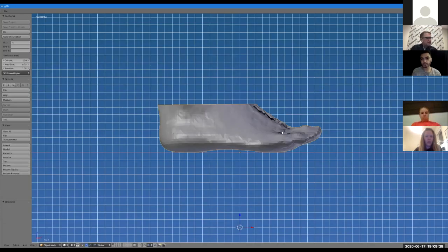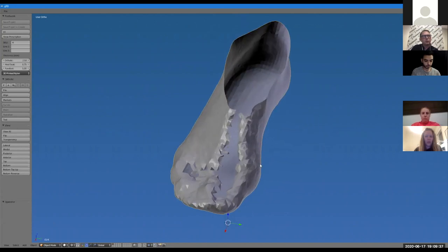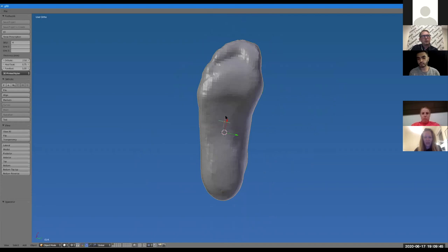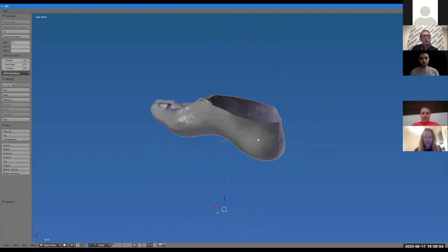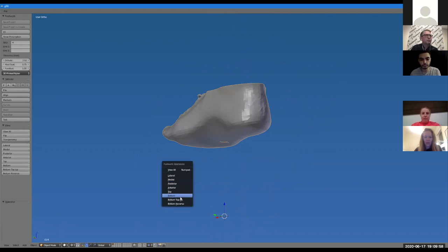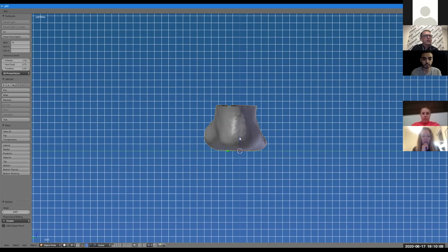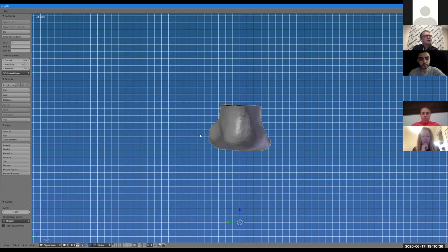Here's a scan taken on the iPad structure scanner — it's a really good scan. The podiatrist went a little overboard and scanned the dorsum of the foot, which isn't really required since we're not pouring plaster. Not all scans are this nice, but if you take care, you get a really good result. The first thing we do is line it up in proper planes so it sits well in our software. We go to posterior view and line it up so we get the rear foot at zero — that's how we begin our design process.